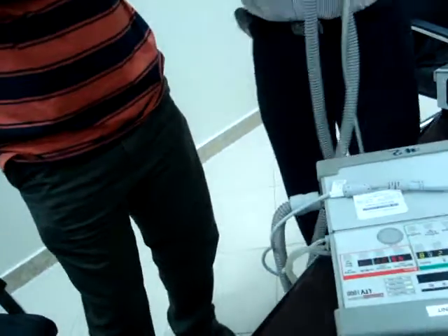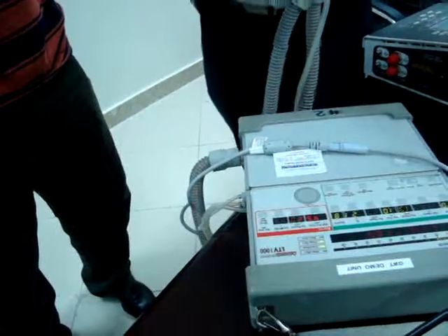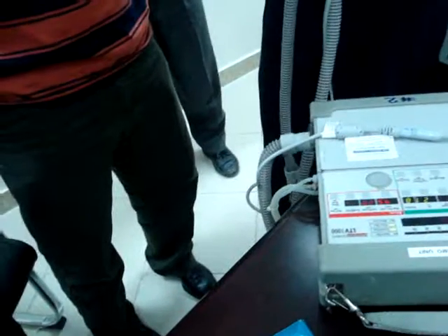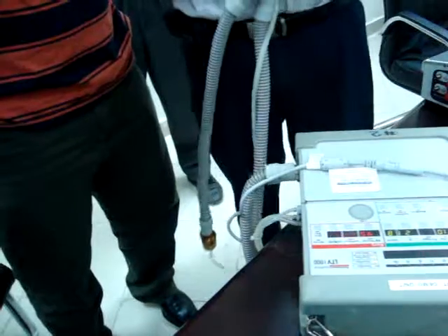Okay. The tidal volume is for one breath: like one push, how much amount of air you want to send. So what is the name of the volume that does not allow the lung to collapse? Residual volume, RV.